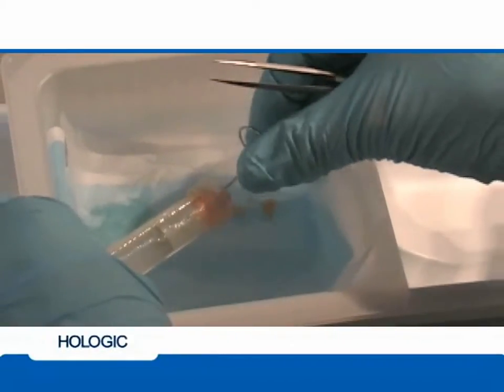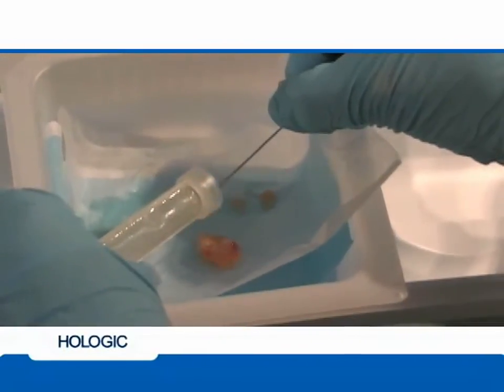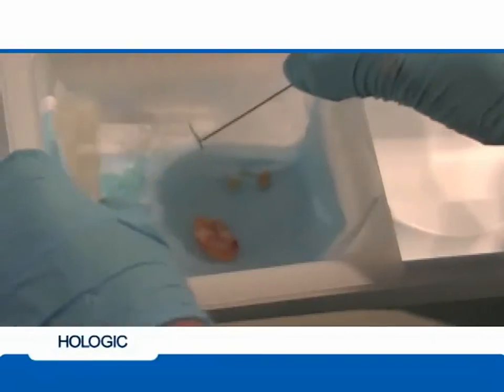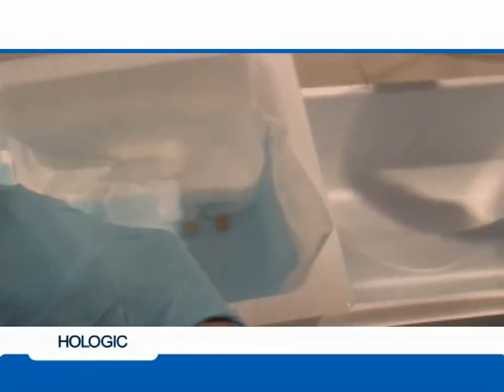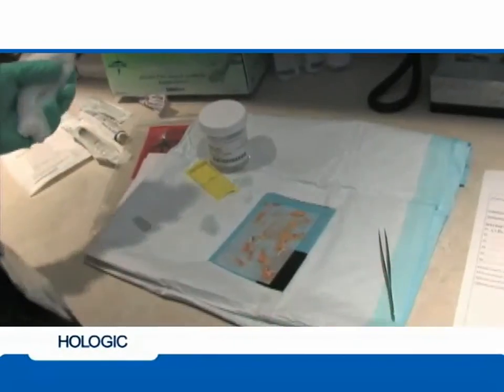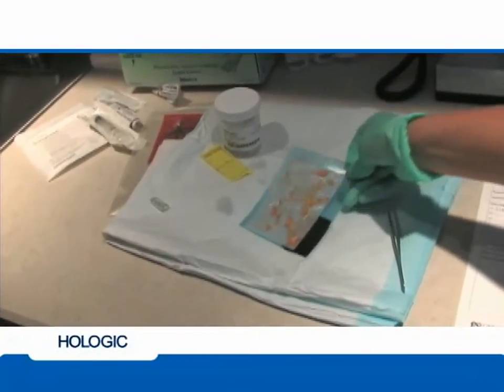Using your fingers, grasp the thin metal wire at the top and around the tissue filter basket. To avoid losing any samples, before pulling up on the wire, tilt the tissue filter basket toward the specimen collection dish. Use the wire spatula or forceps to separate the tissue samples on the prepared surface to be imaged. Take the specimens to be imaged.